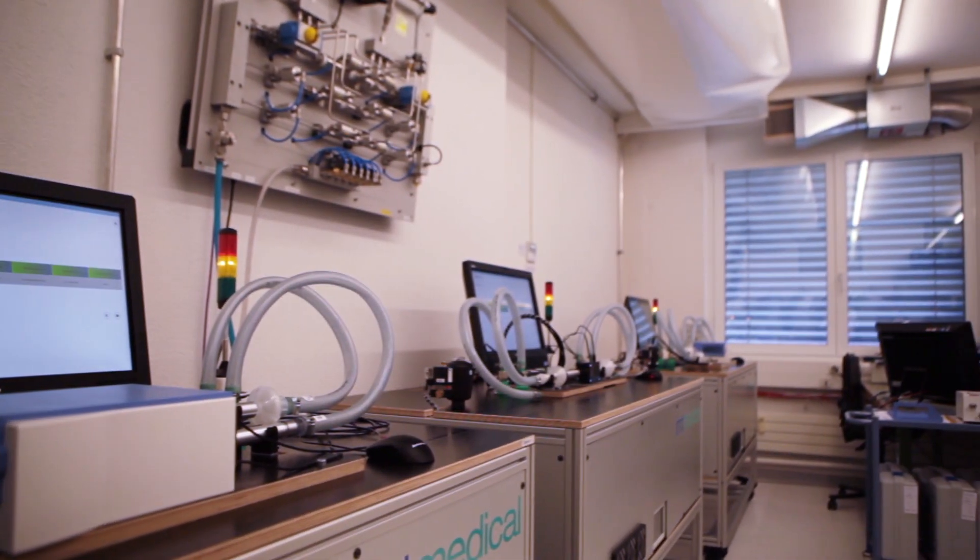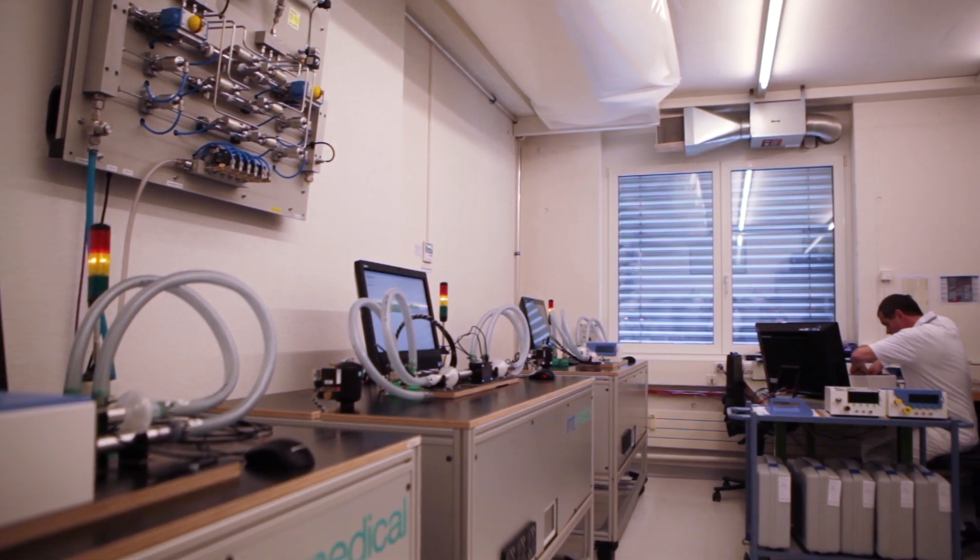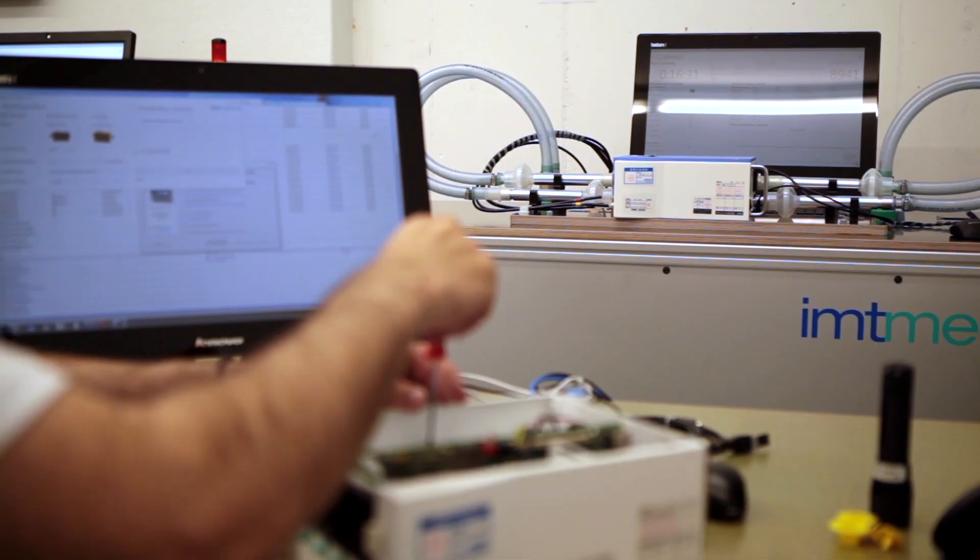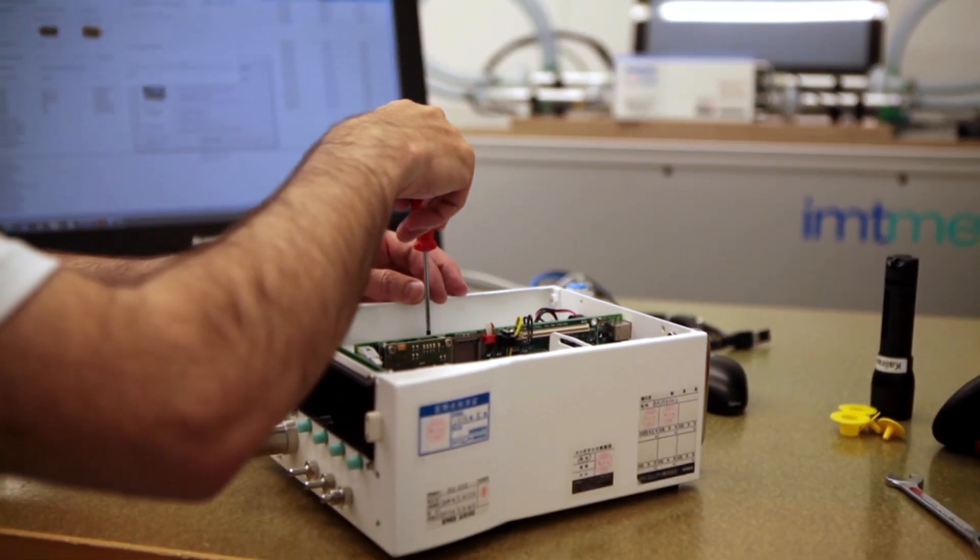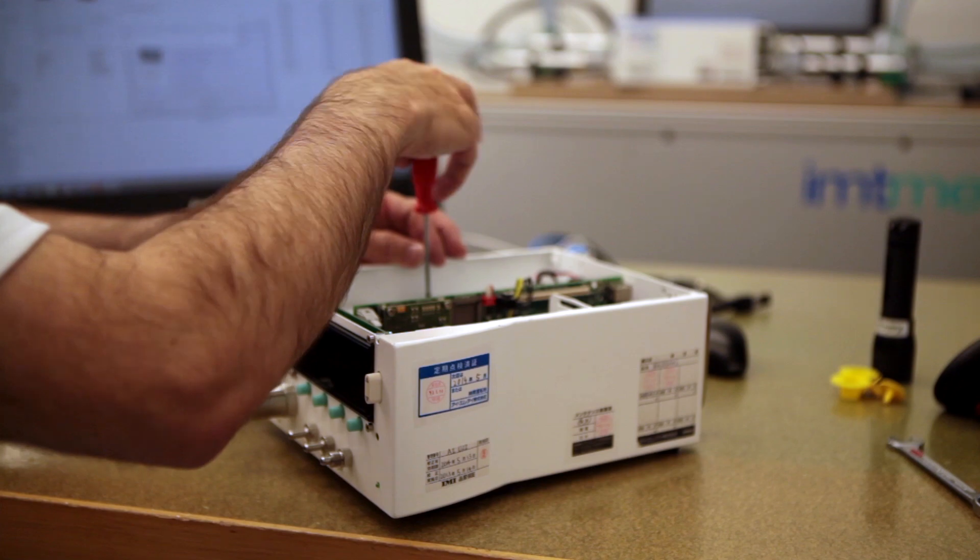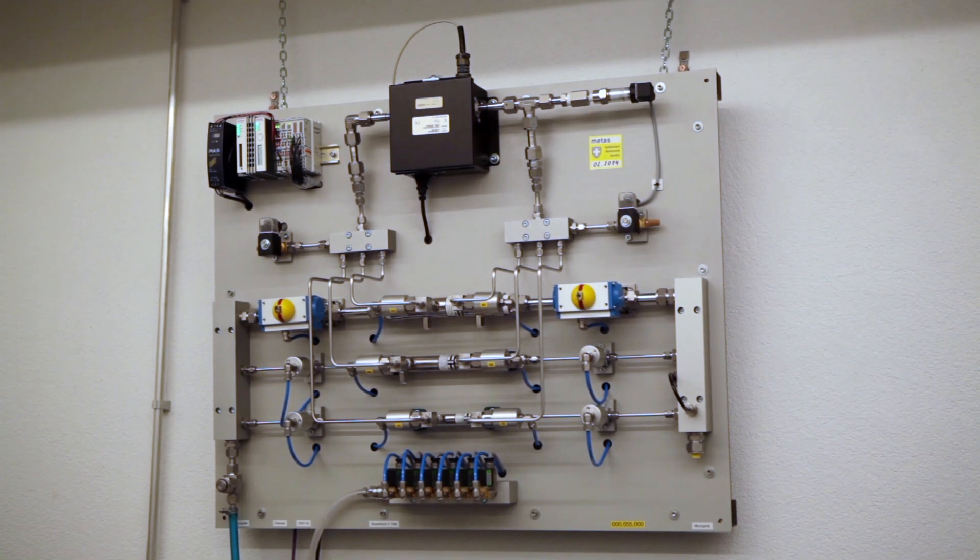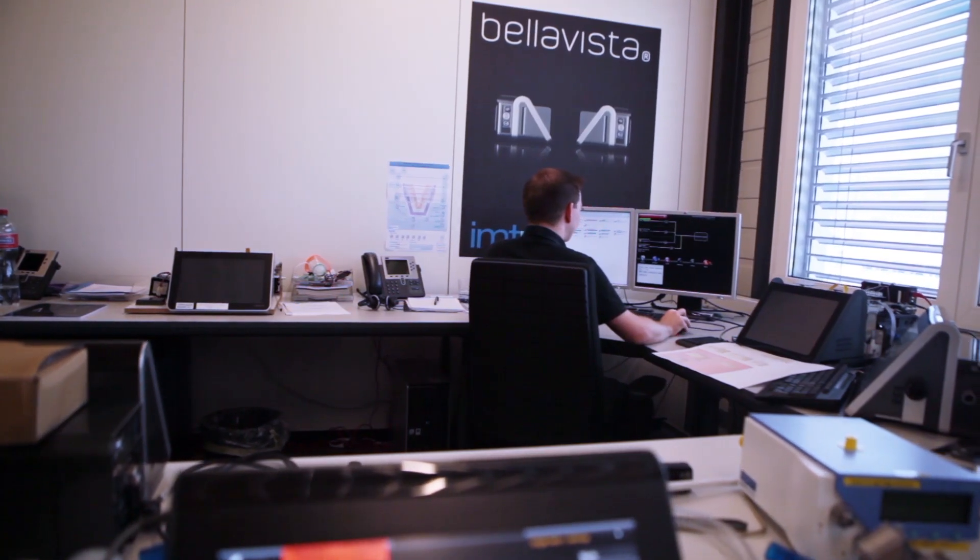These devices, before being delivered to the customer, are checked in a highly automated and detailed process, using test devices specially developed for the purpose. When it comes to test results, we comply with government-calibrated reference values.